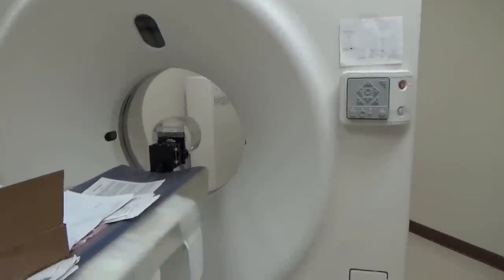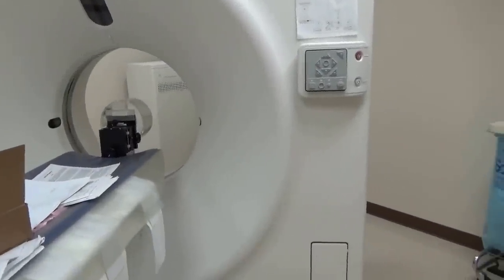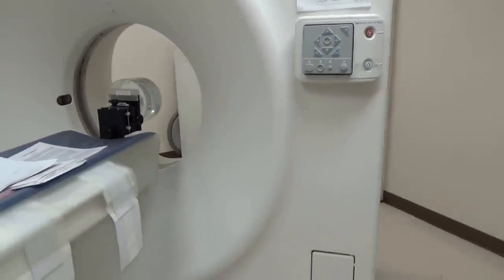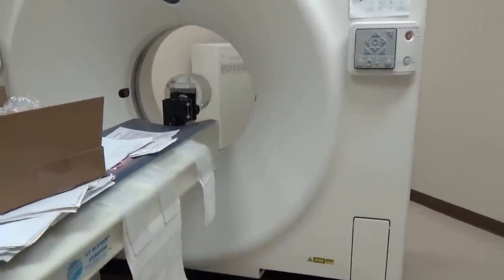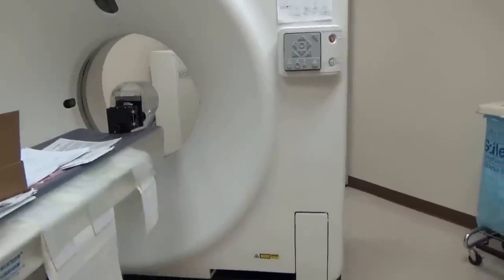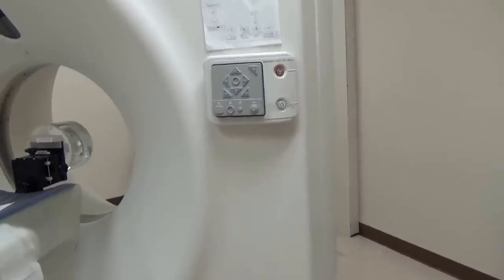We're going to do something a little different today. We're on a job site, and we're going to learn a little bit today about what is a CT or CAT scanner. Any of you that have had a CAT scan done may recognize this. Let's go over the parts a little bit.